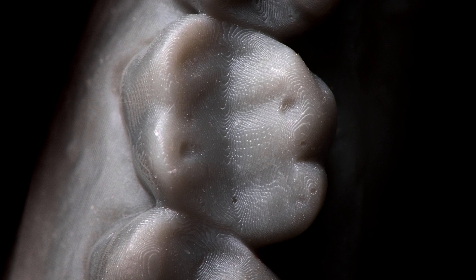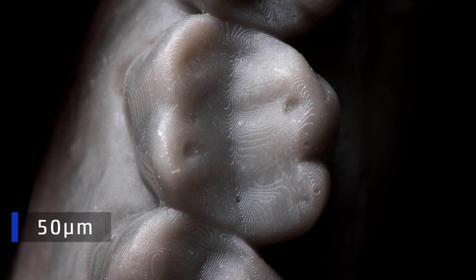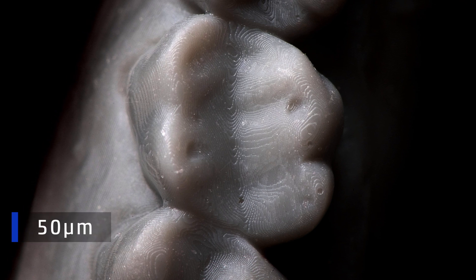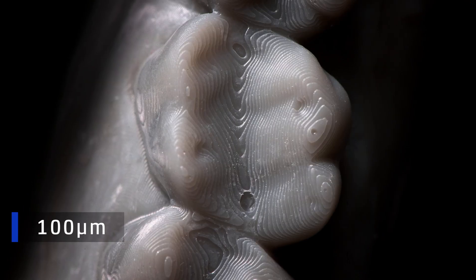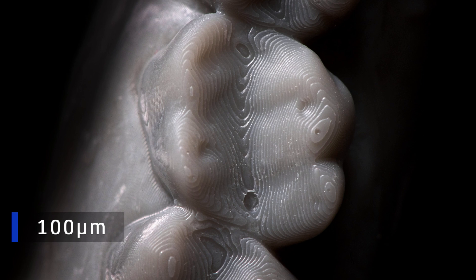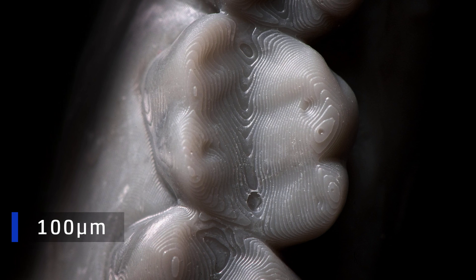Now let's choose the layer thickness. This step is crucial as it affects both quality and printing time. A model at 50 microns will be twice as accurate as a 100-micron model, but it will have double the amount of layers and therefore take twice as long to print.